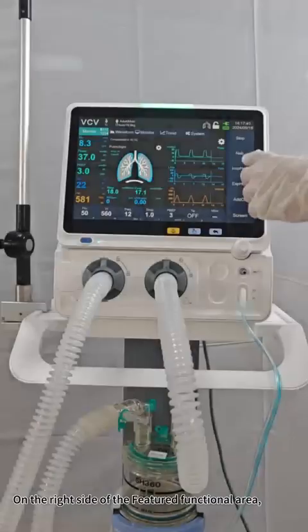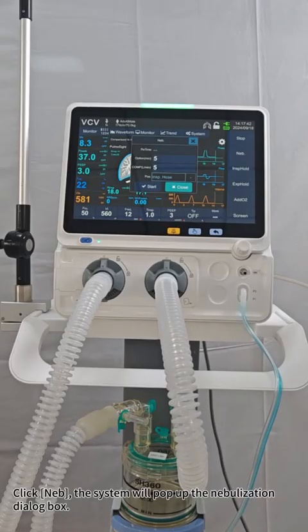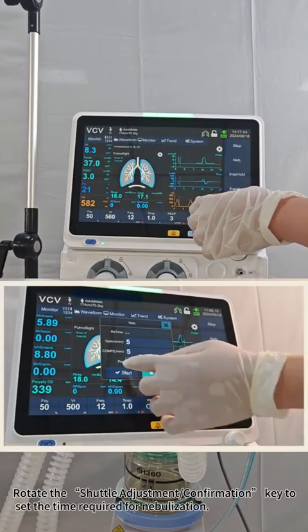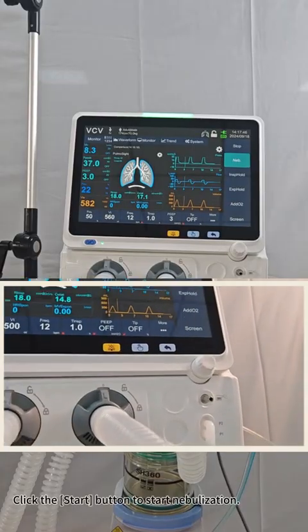On the right side of the featured functional area, click Neb. The system will pop up the nebulization dialog box. Rotate the shuttle adjustment/confirmation key to set the time required for nebulization. Click the Start button to start nebulization.